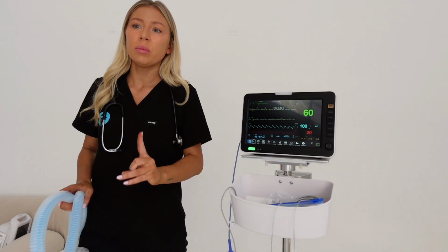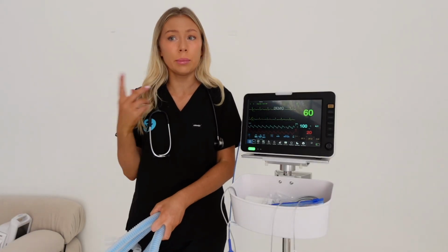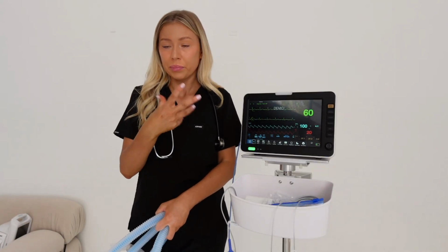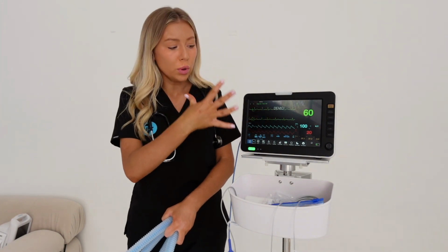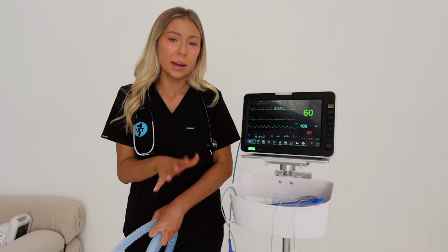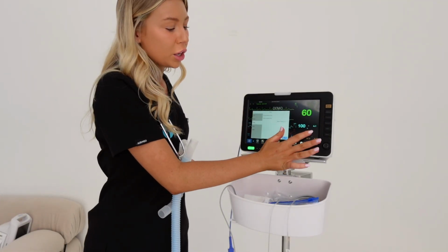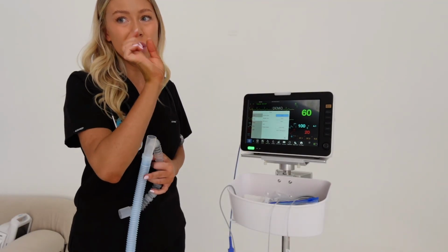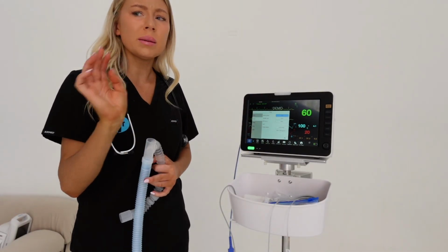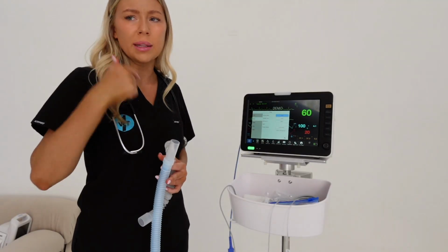One thing a lot of people don't realize with end-tidal CO2 is that you need to calibrate your sample line. On your monitoring machine, you will get the option to zero it off. Make sure you're doing that at the start of every anesthetic. Your end-tidal CO2 is going to come up around this area where your respiratory rate is. You just press on it and it'll give you an option to zero. Sometimes it'll take 30 or 60 seconds to zero, which just means that it's calibrating that line.